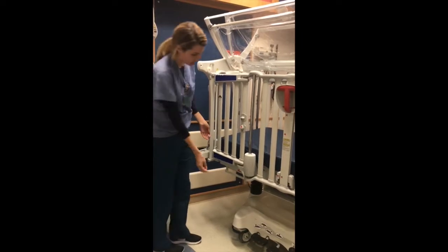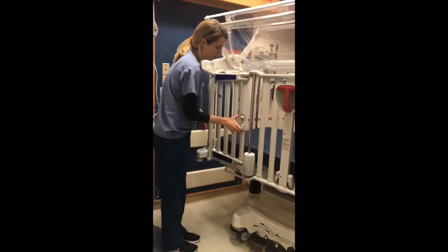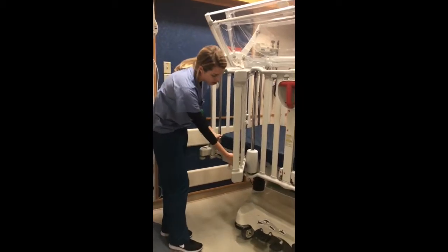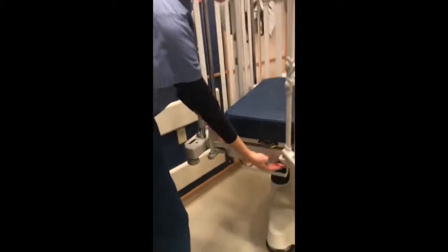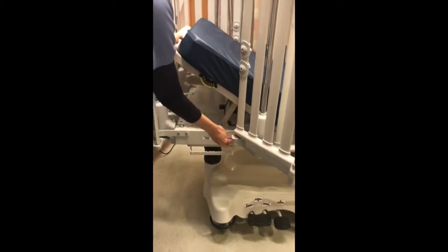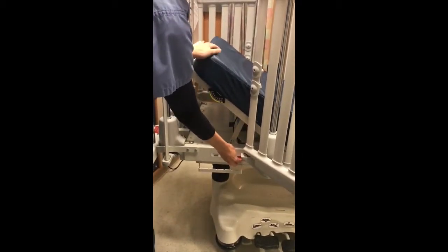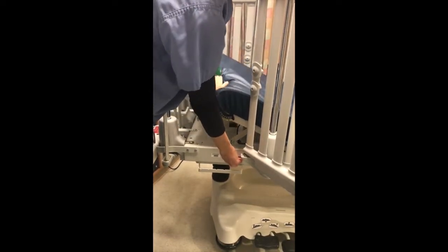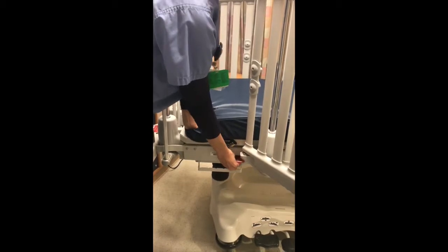Last, if you want to raise the head of the bed, there is a red lever that you simply lift up to adjust the head of the bed. If you want your child to be sitting up assisted, or if you want the head all the way down, lift the lever again and push down. Make sure the door is closed and everything is locked.